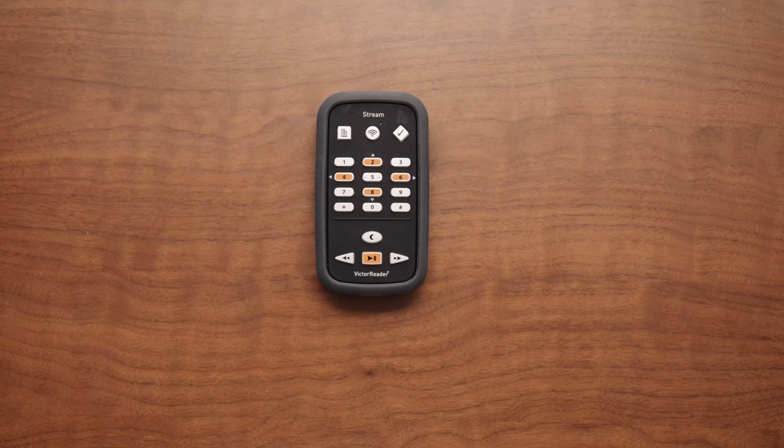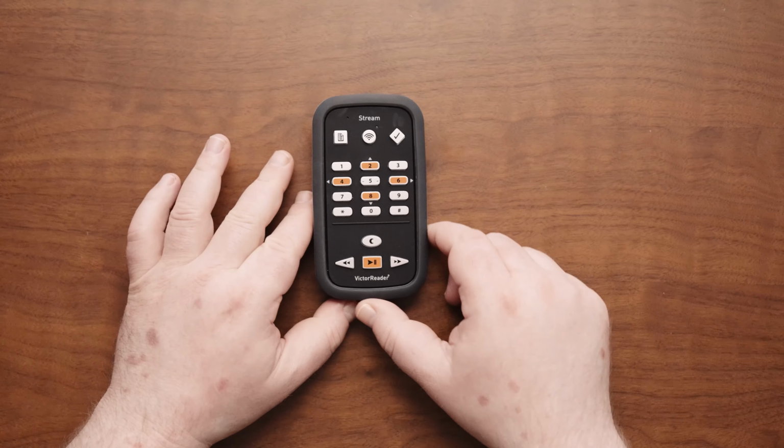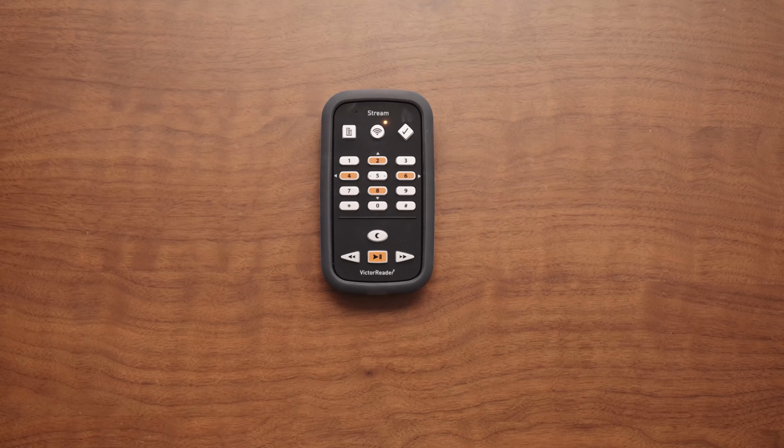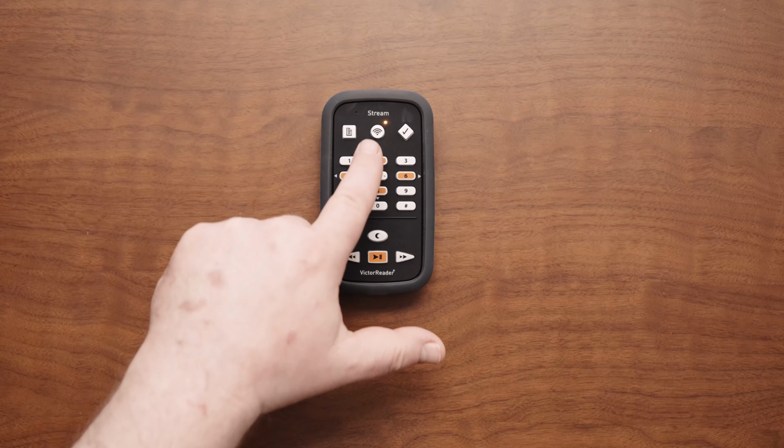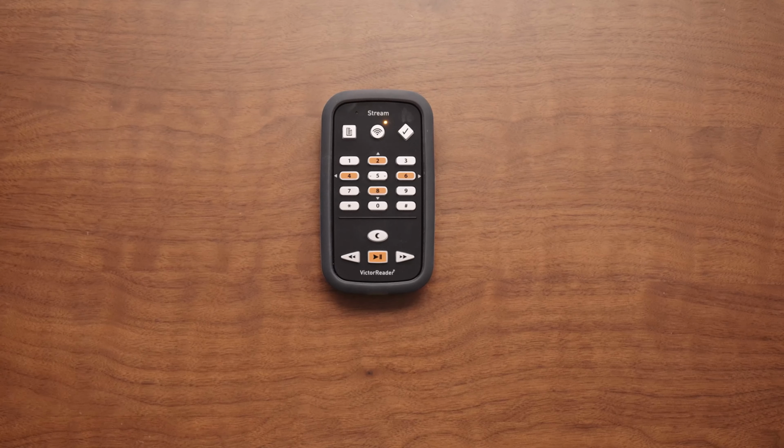Connecting to a Wi-Fi network. 1. Turn on the VRS and wait for the welcome message. 2. Make sure the airplane mode is turned off on the VRS. The default mode is set to on. The airplane mode can be toggled on or off by pressing and holding the online button. This is the circular-shaped key on the top row of the VRS keys.